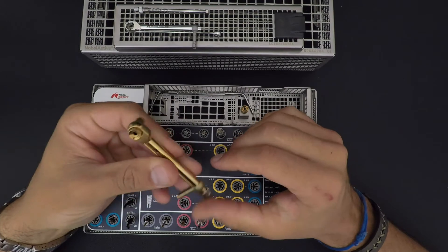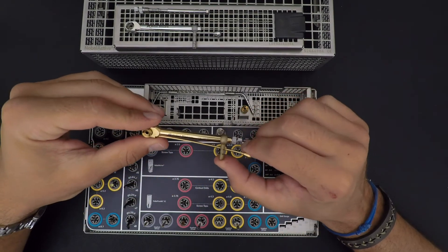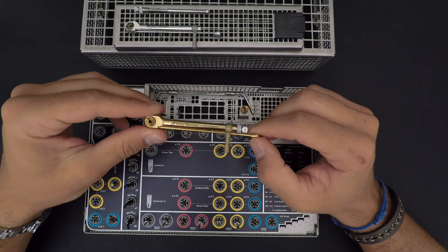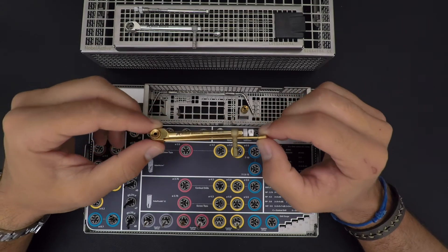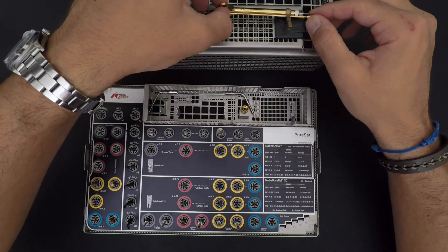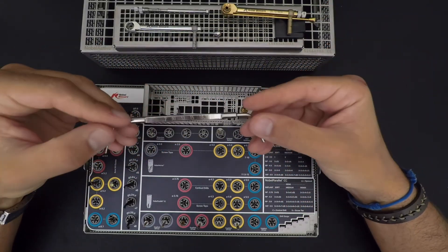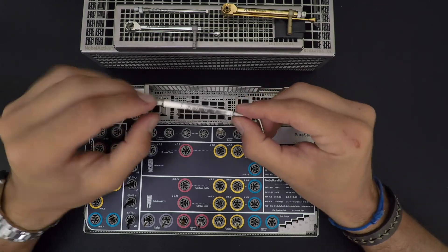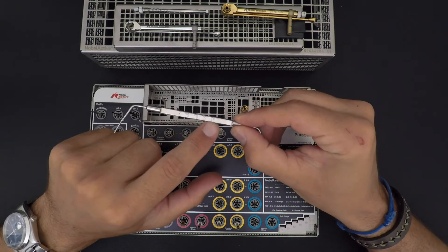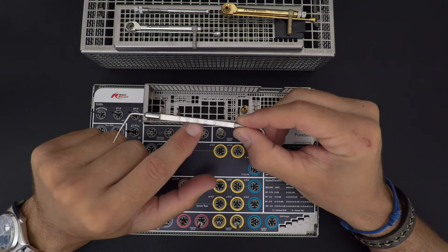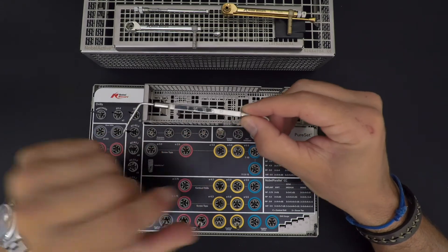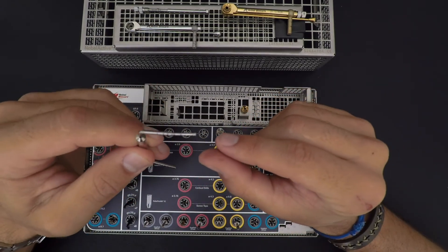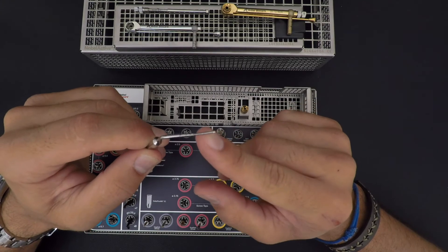You got your probe as well. Here has different lengths: 7, 10, 13, 15, and 18, which you also have some marks. I don't know if you can see on the camera, you got some marks here.